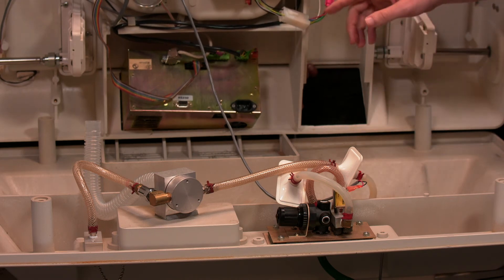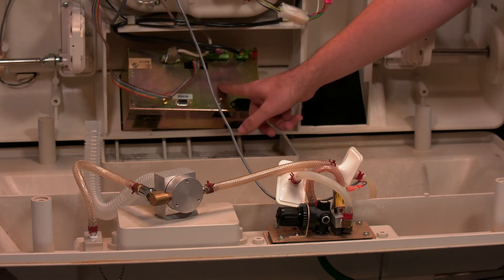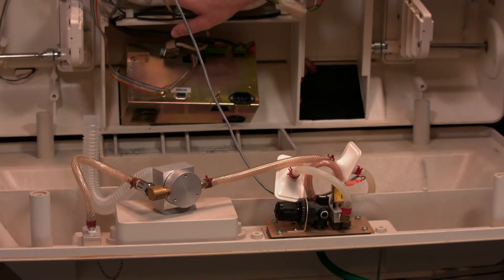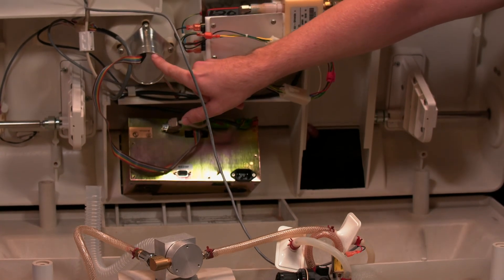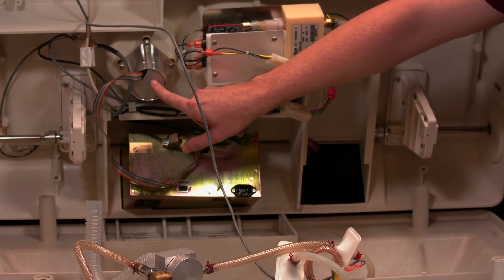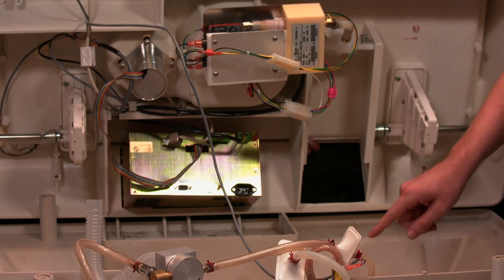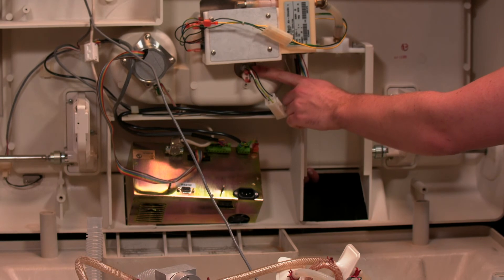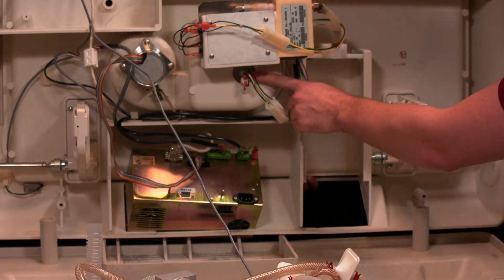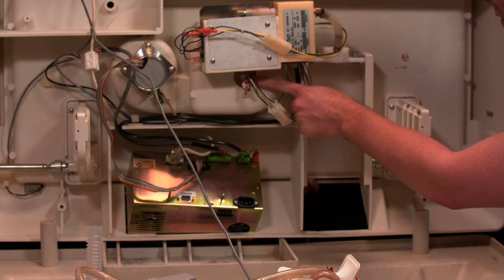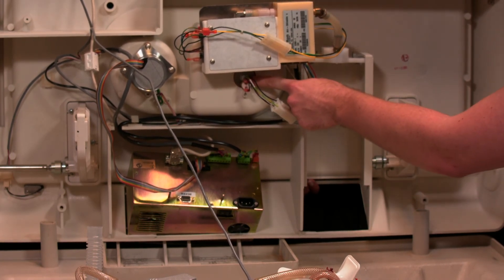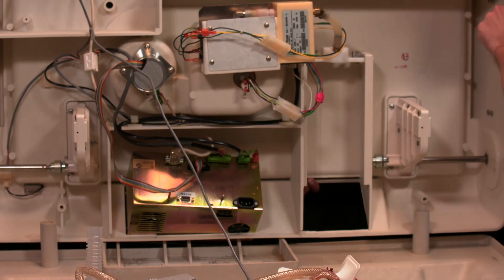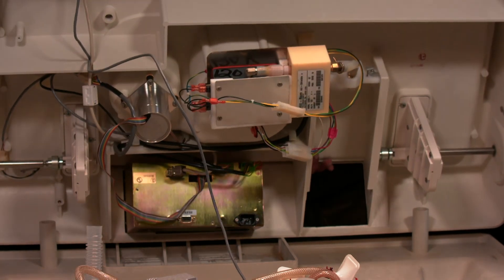In terms of the heating unit, inside here is the temperature control that is attached to the monitor. Here is the motor that is attached to the impeller. That is what drives the air inside the heating unit. And under here is where the heater is directly attached to the temperature control, and that is where the power flows into the metal radiator unit. And that is the entire device in terms of the heating unit.